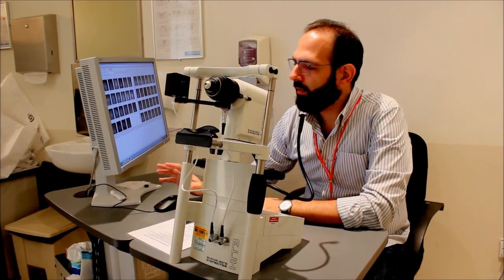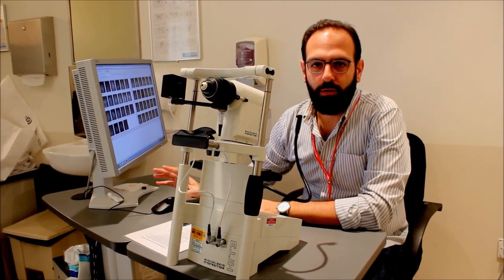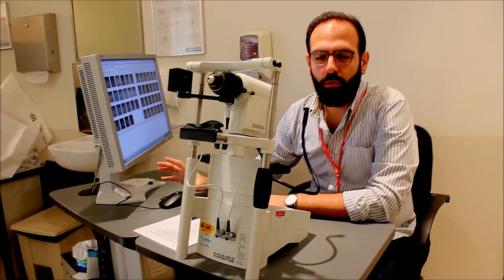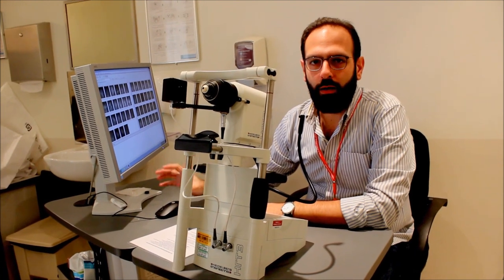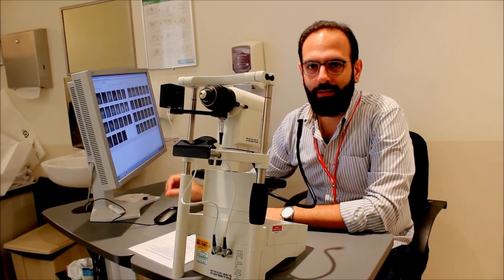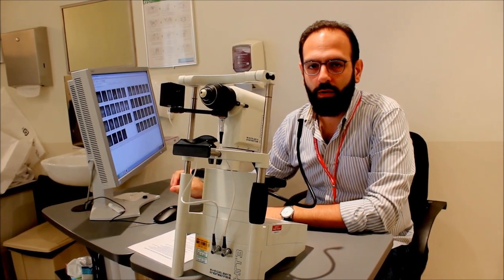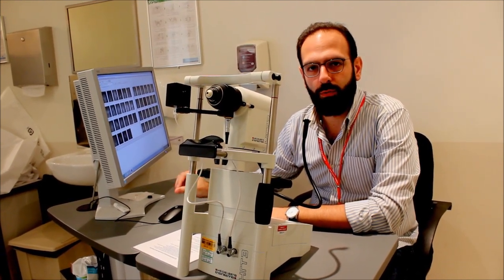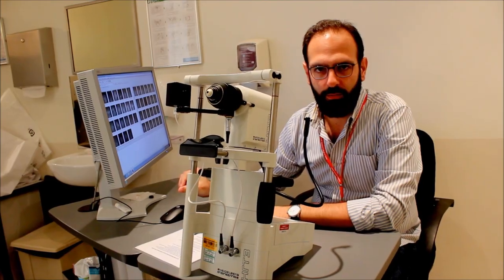Hi, so this is the part of the CCM training series where we're going to show you how to extract CCM images for analysis with the software CCMetrics.